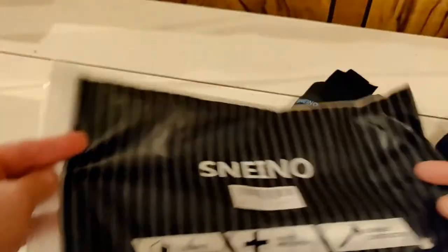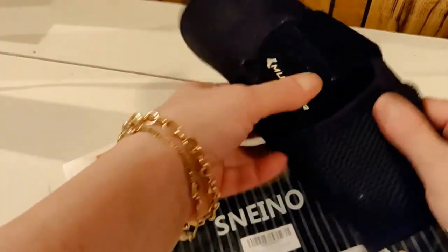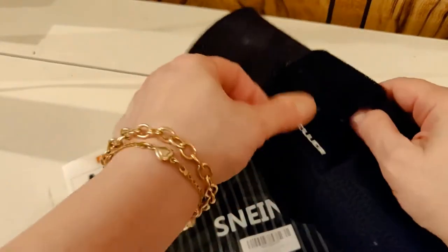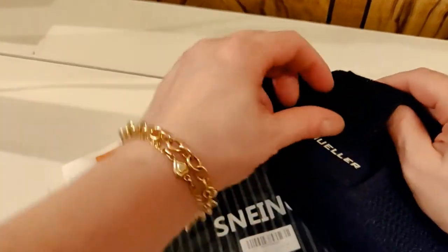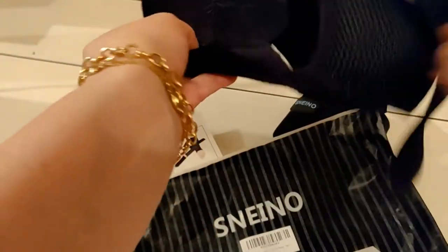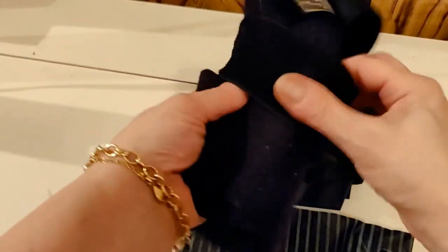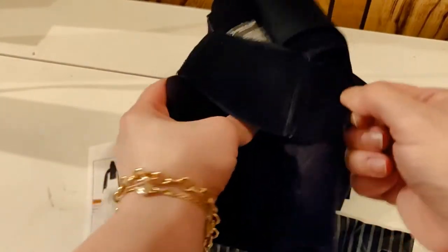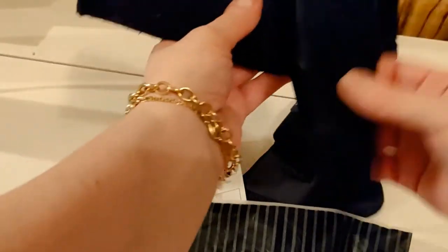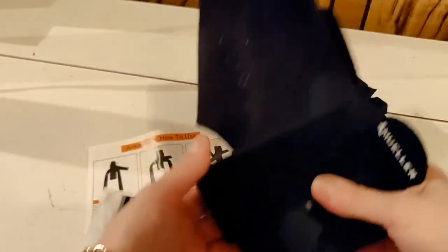So I decided to try this. Before I do that, let me show you — I did buy a brace at the store because I was eager and it was right there. It has the same crisscross straps, but it doesn't have all the other wonderful accessories that the other one has. This one was okay, it didn't give me a lot of support, but it was good for the time being.